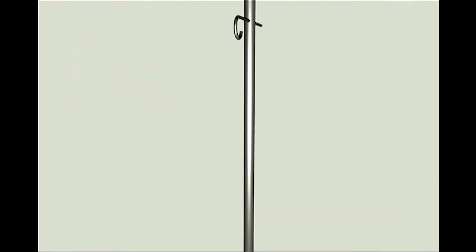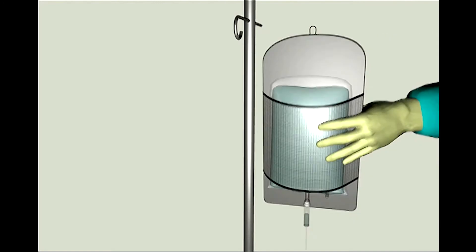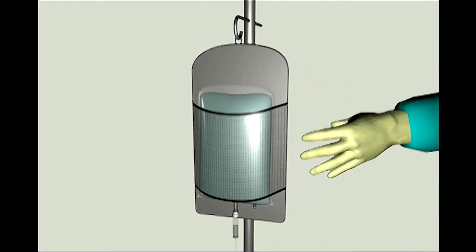Step 7: Gravity prime the TruWave system. Insert the IV bag into a pressure infuser bag and hang on an IV pole. Do not inflate.